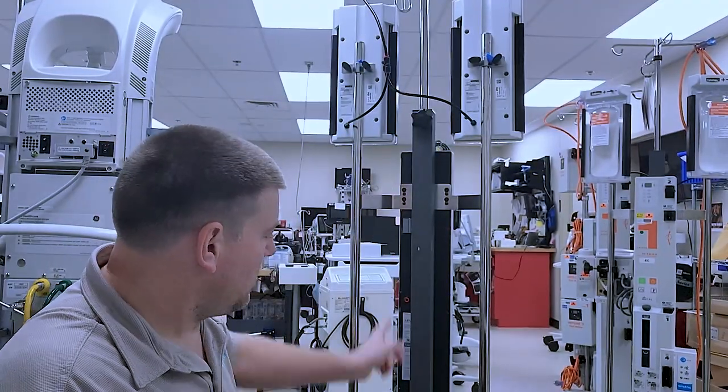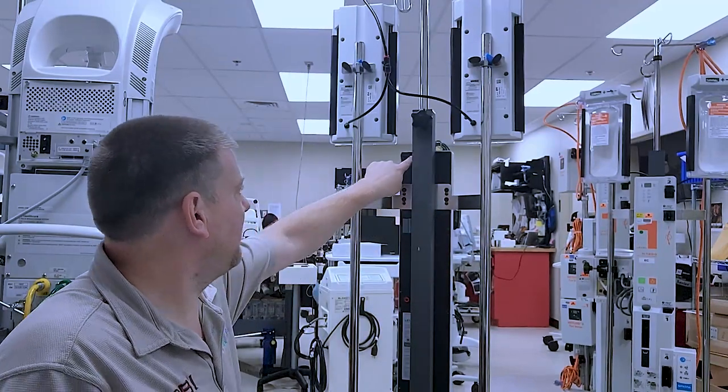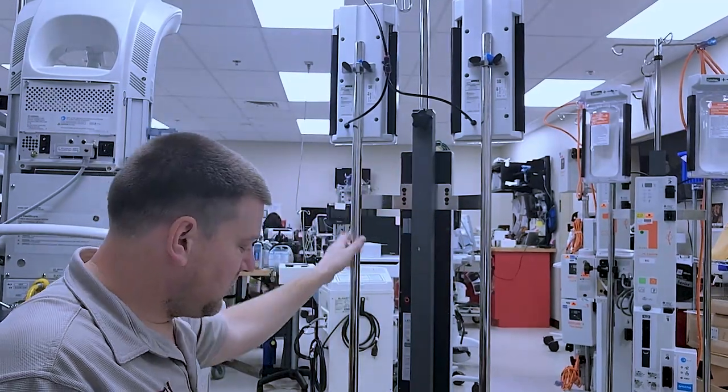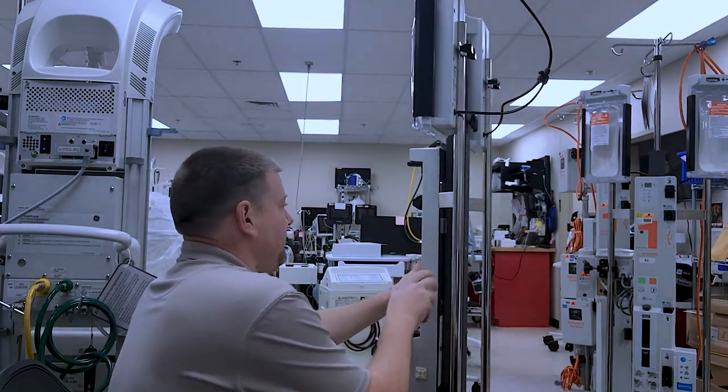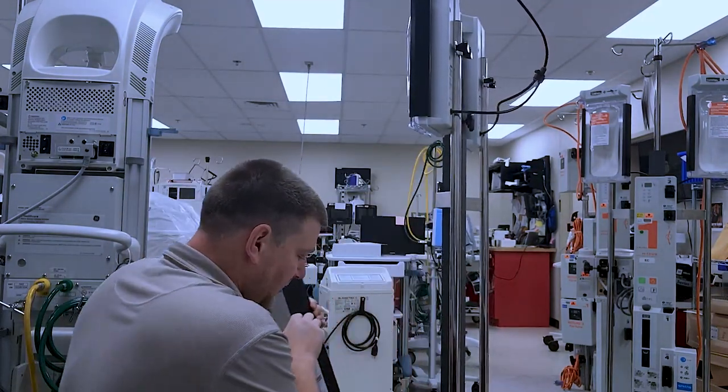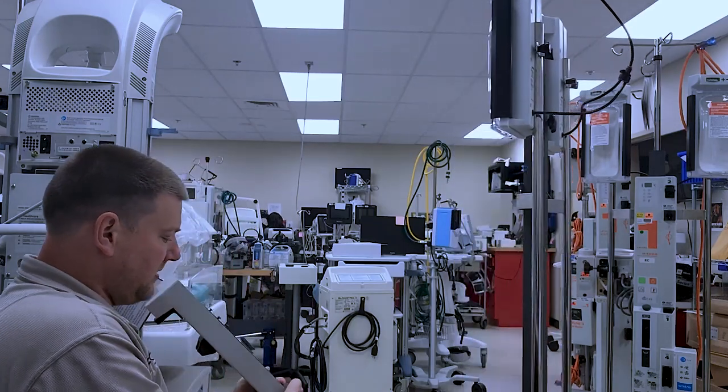Okay. I've got all the number one Phillips out of the perimeter. I have one more number one Phillips right here. So what I've got to do is I'm going to rotate it sideways. Lift it off and tilt it down.